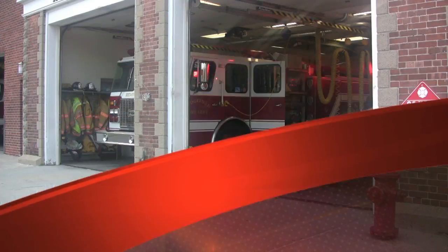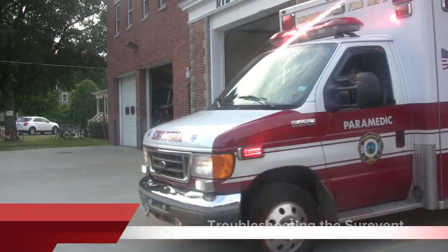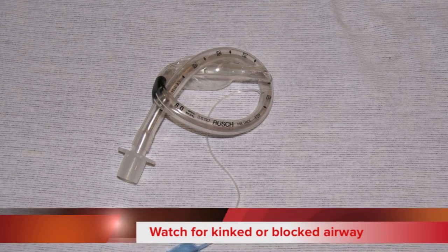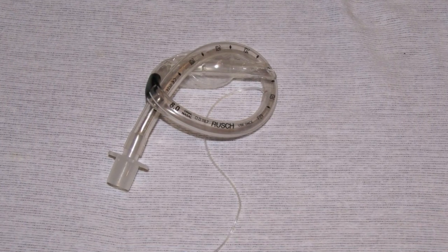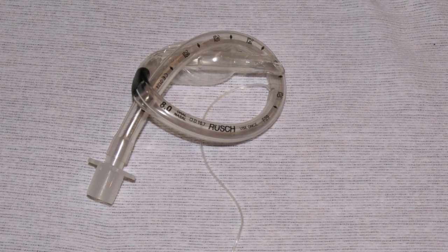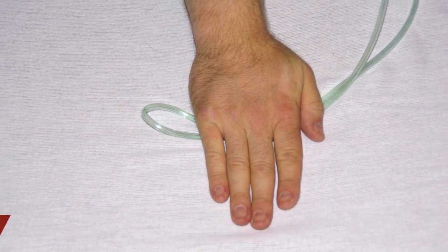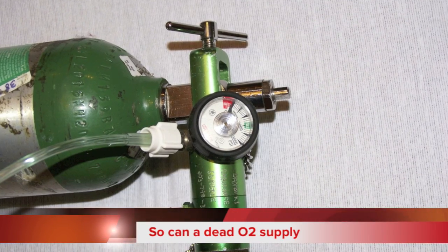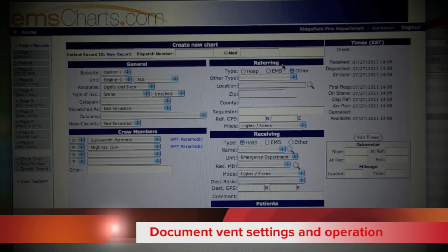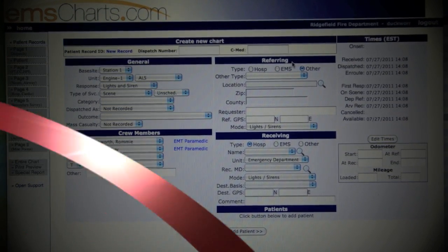In emergency situations, problems arise. Here's how to troubleshoot the Surevent. If the ventilator fails to work, stops ventilating, or begins to cycle very rapidly, watch for a kinked or blocked airway. If the ventilator fails to operate, check your oxygen supply to see if it's reduced or empty. Of course, always document your ventilation settings and the operation of the device in your EMS chart.